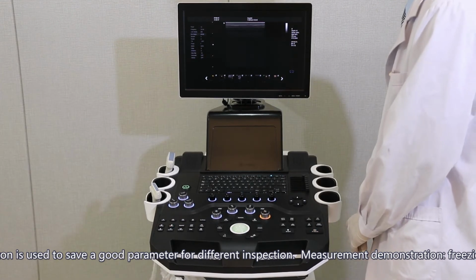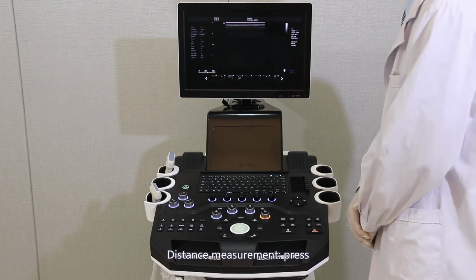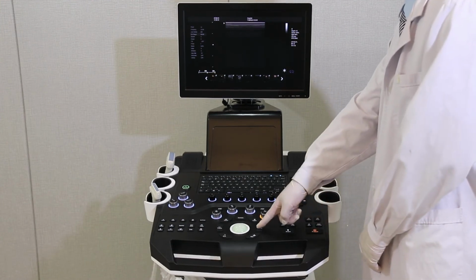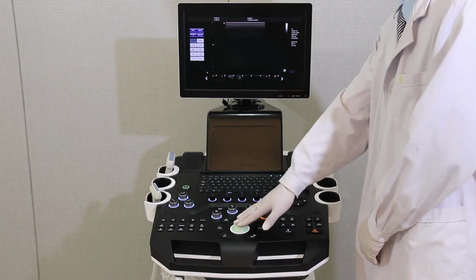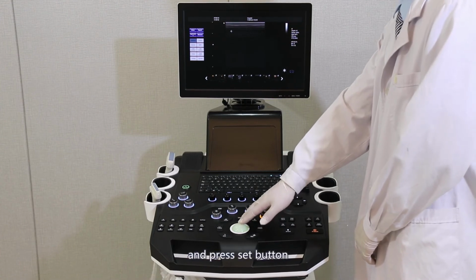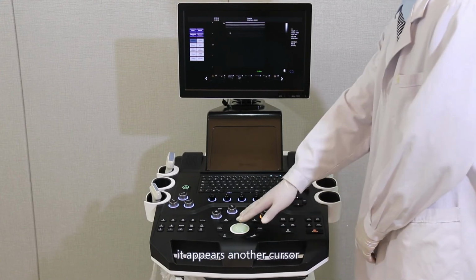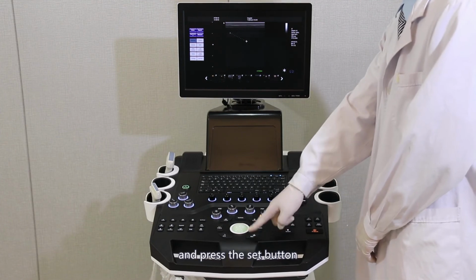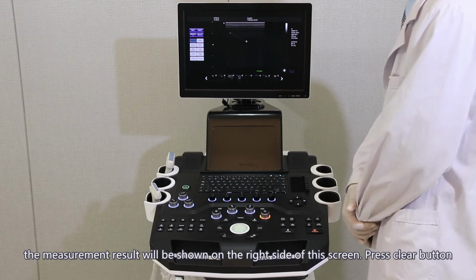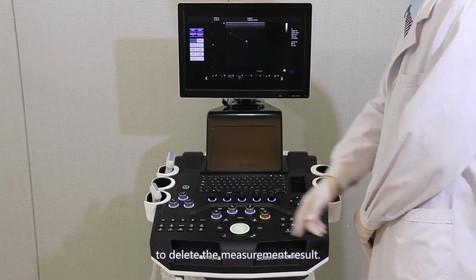Measurement demonstration. Freeze the image. Distance measurement. Press the Calip button. The measurement cursor appears. Move the cursor to the 0 position and press the Set button. Another cursor appears. Move the trackball to the end and press the Set button. The measuring result will be shown on the right side of the screen. Press the Clear button to delete the measurement result.